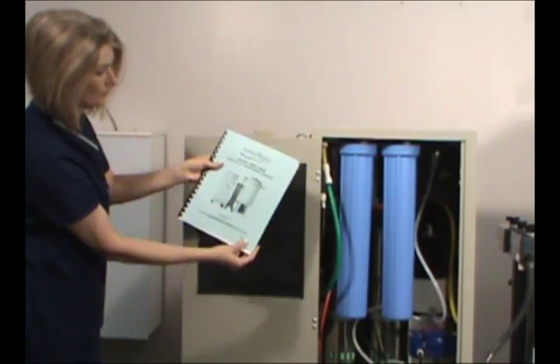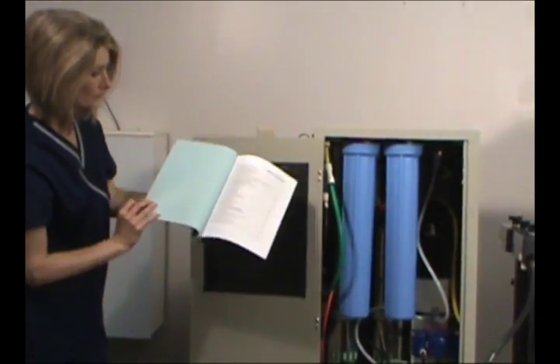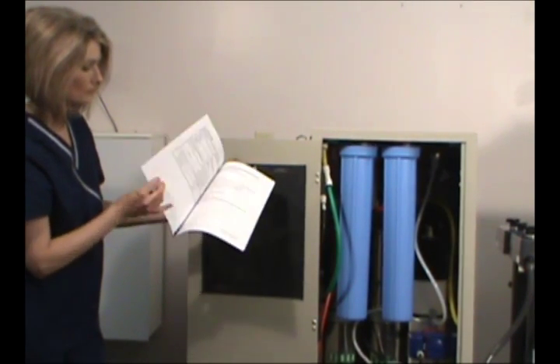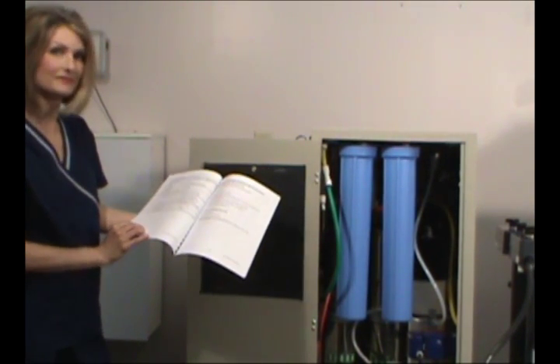You'll find more information on every facet of installation, startup, and maintenance in the handy instruction booklet stored inside the door of your RO unit.